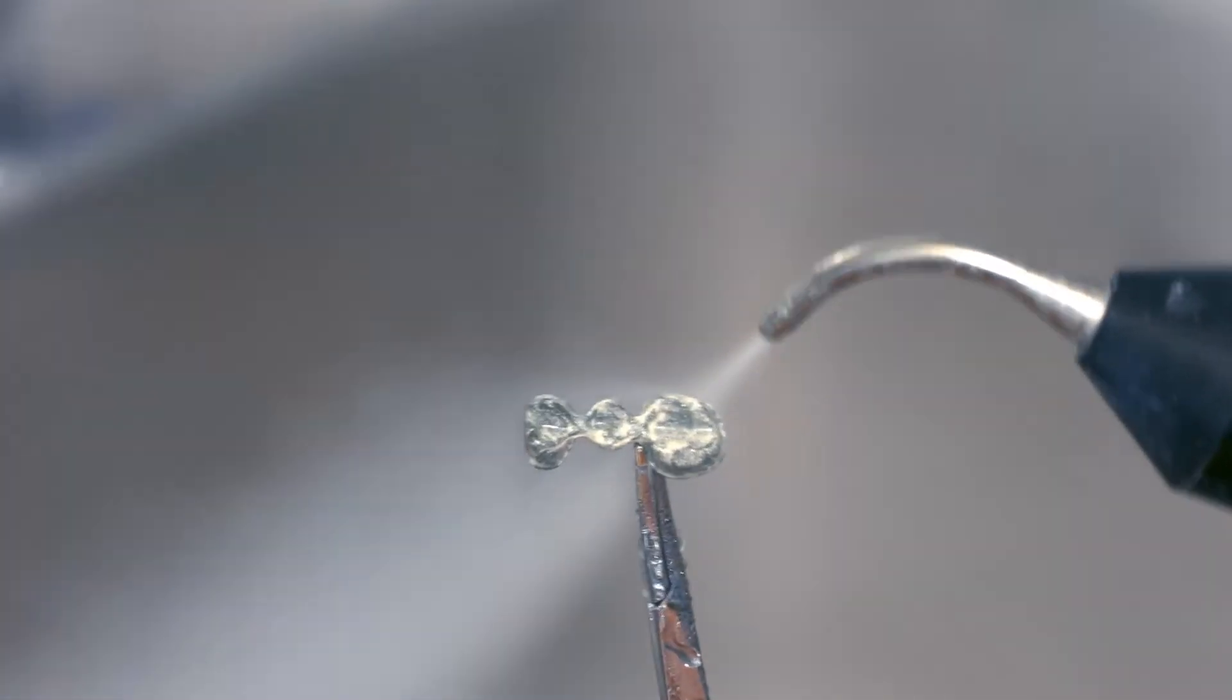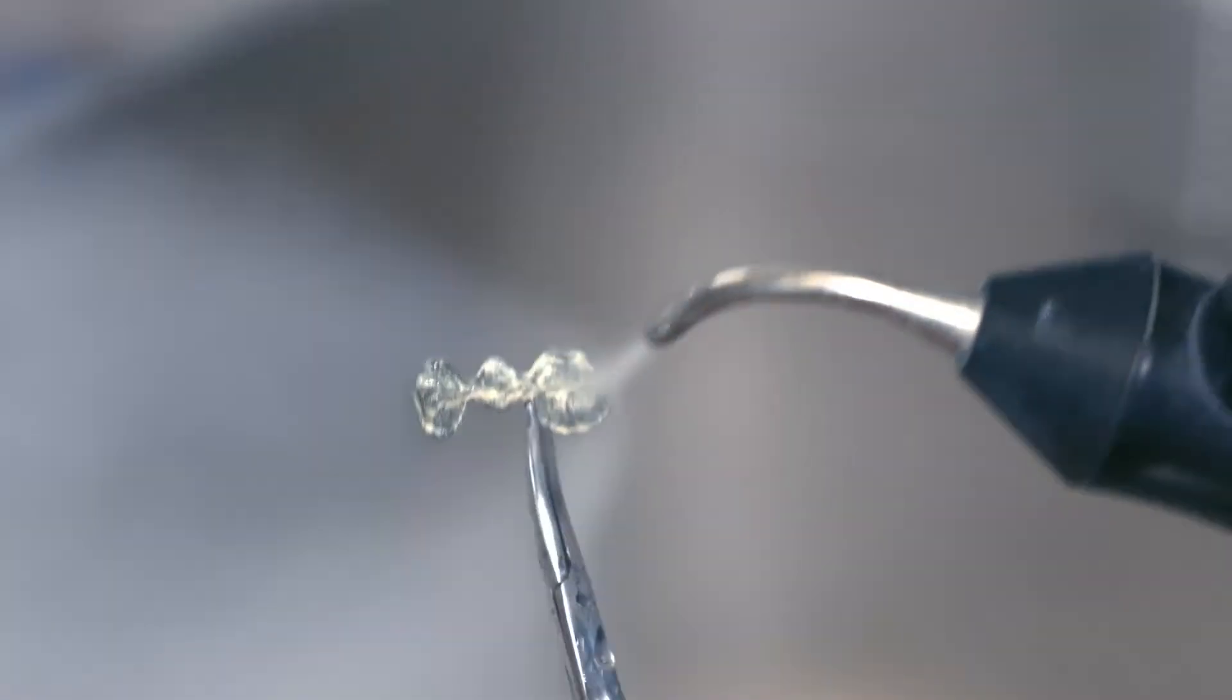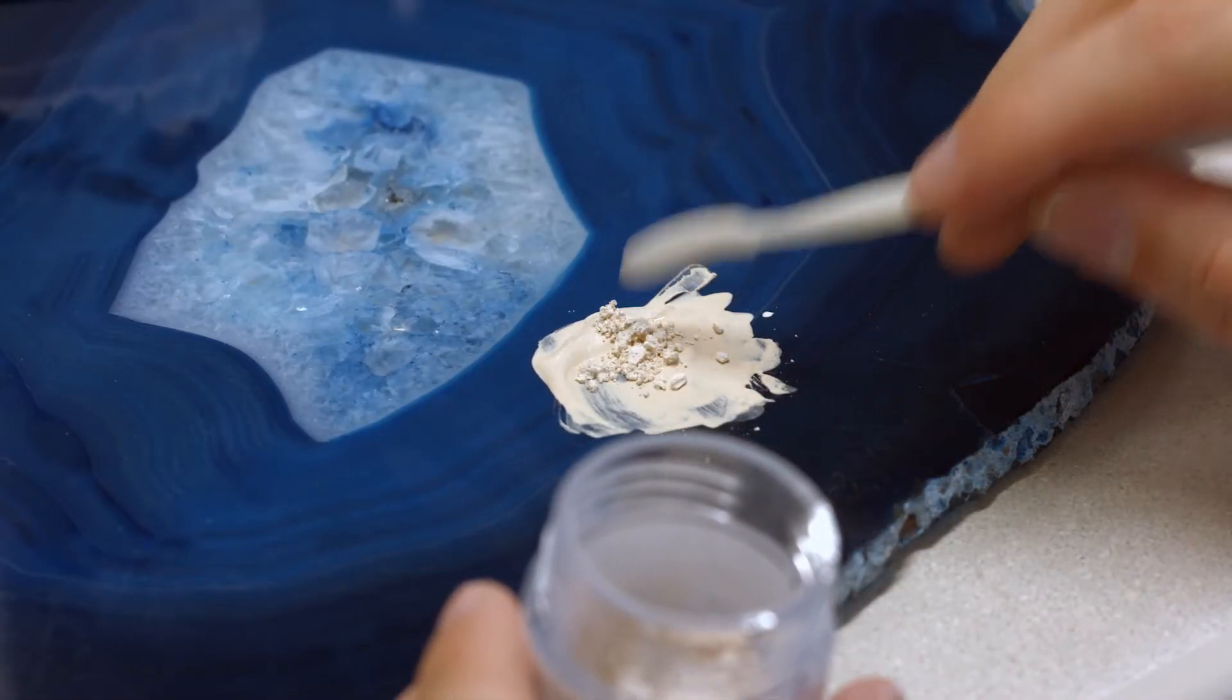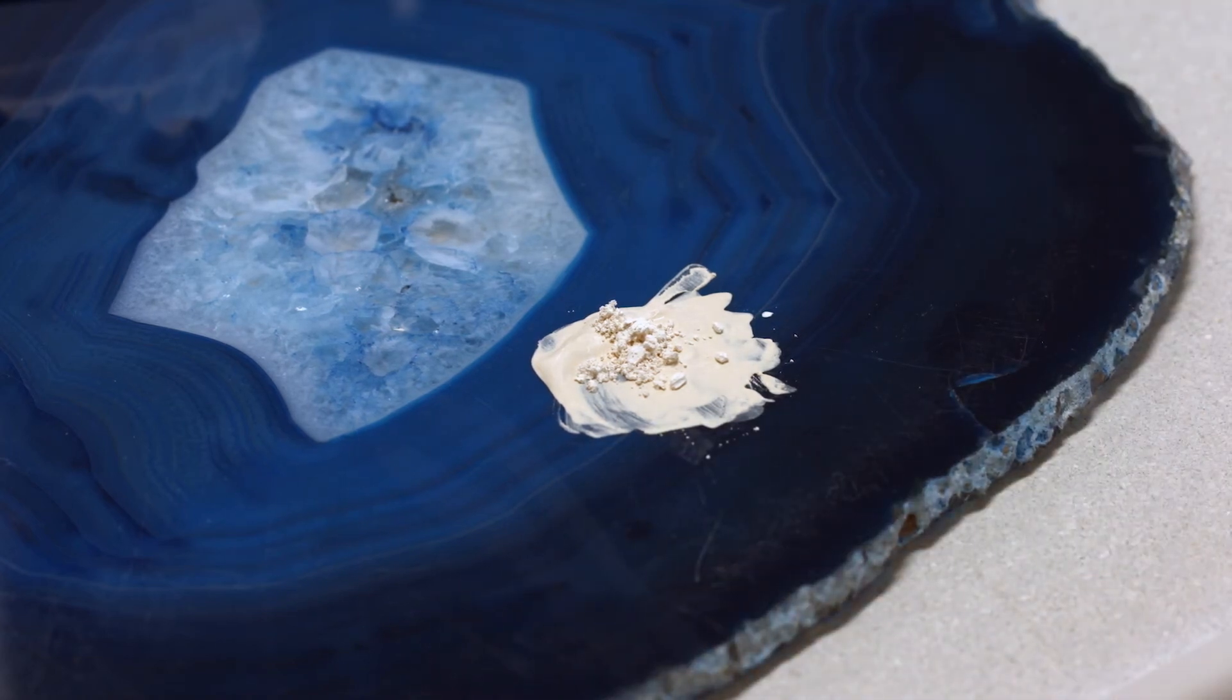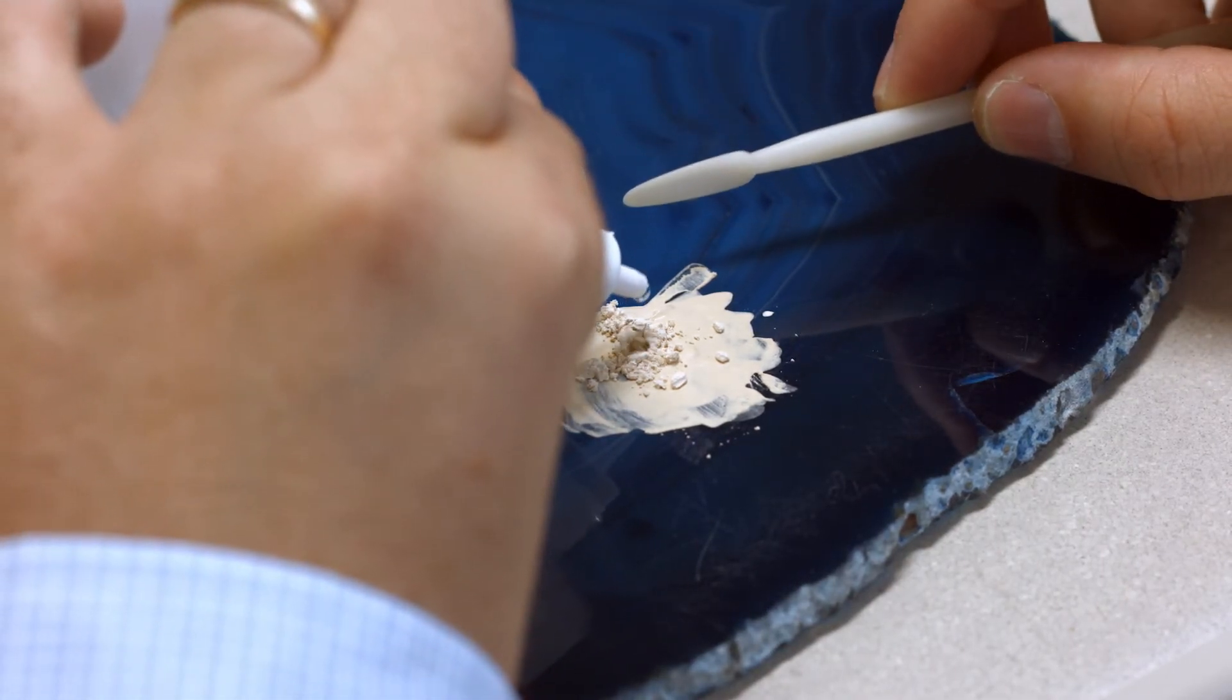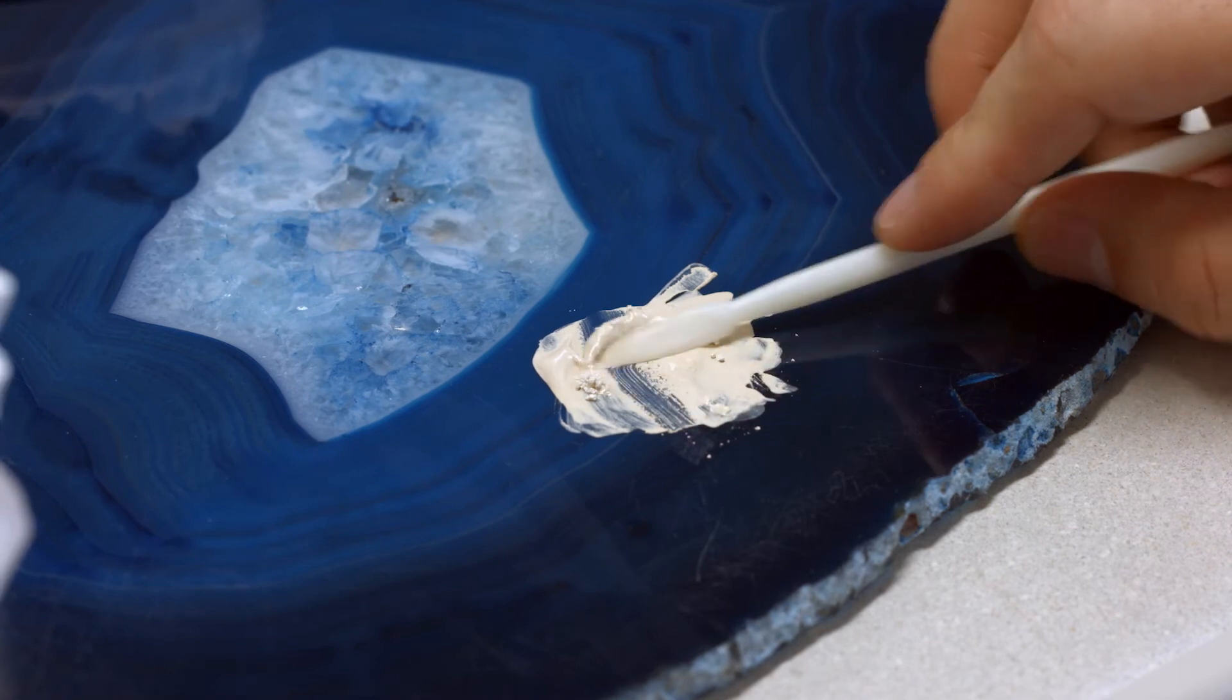Next, the framework is thoroughly cleaned with a steam jet and dried with oil-free air. Remove the amount of opaquer powder required for the covering layer from the jar and add it to the dried wash opaquer residue on the mixing pad. Mix it to the desired consistency with some IPS Powder Opaquer Liquid.